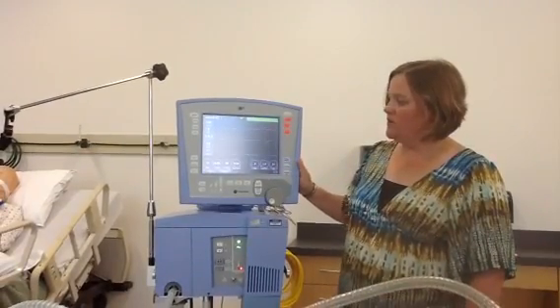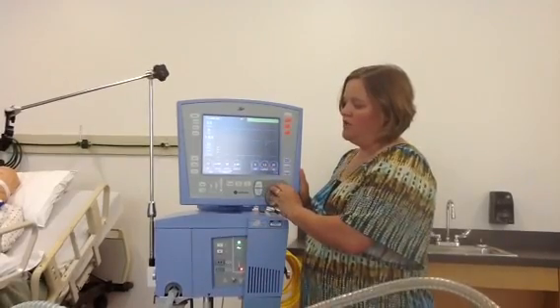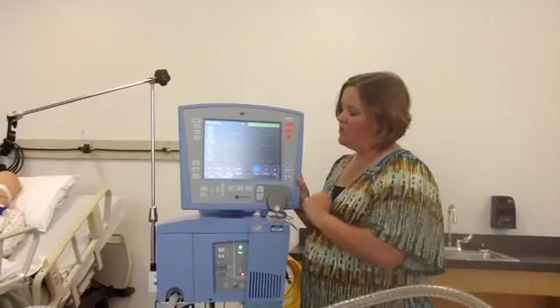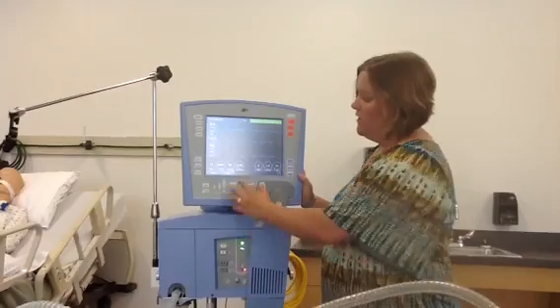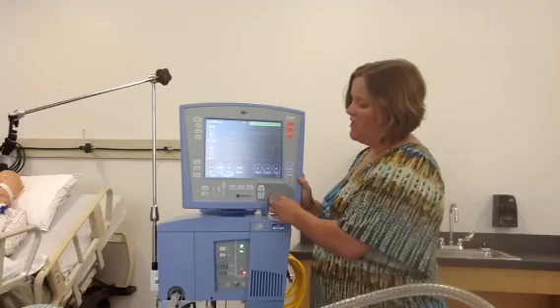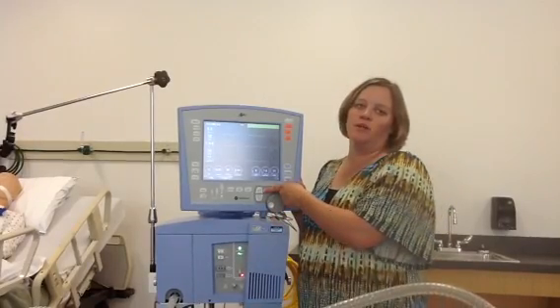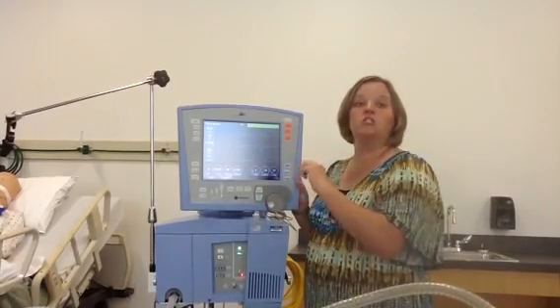The first thing I want to point out is that we have a touch screen that you can touch, turn, and accept. Most all of these are touch screen as well, and you just turn the knob. Any time you change anything on this AVEA ventilator, you use this turn knob to change it, and then you either retouch where you applied the change, or you press the accept button. So as we go through, I'll talk you through touch, turn, and then accept.